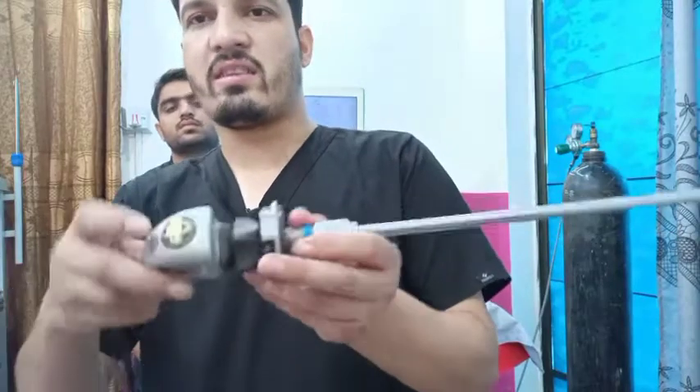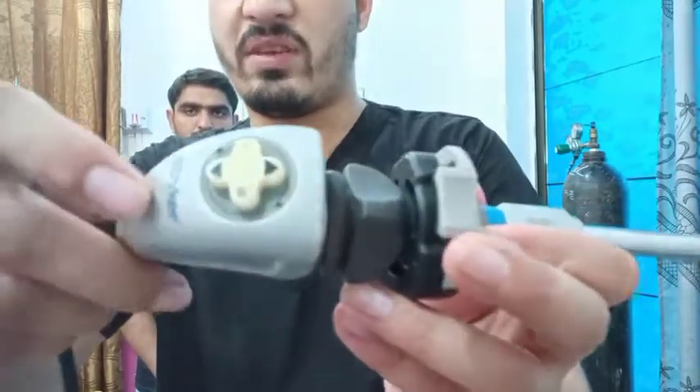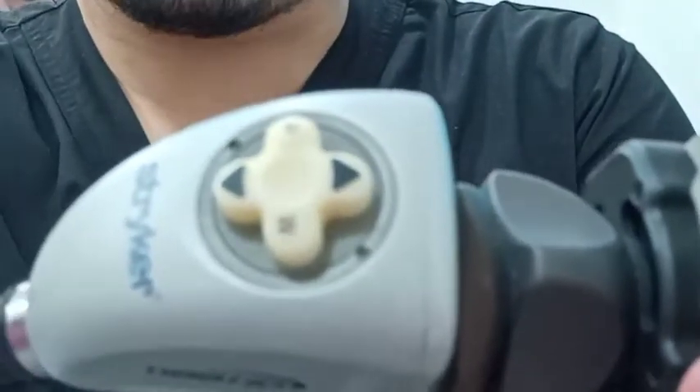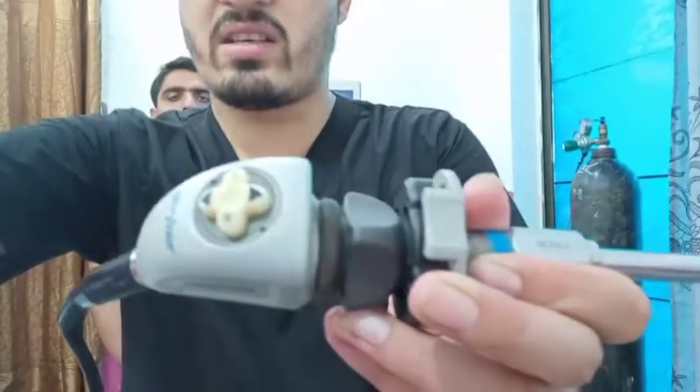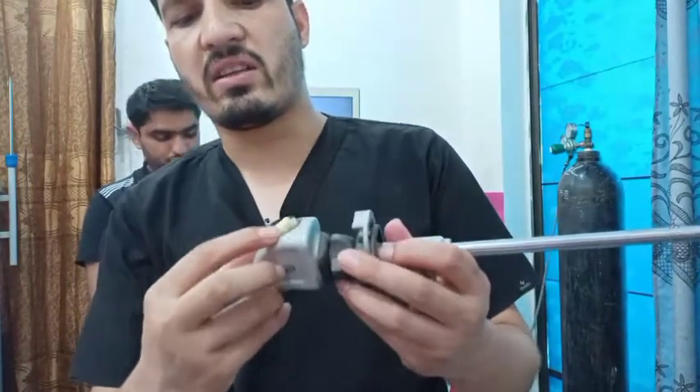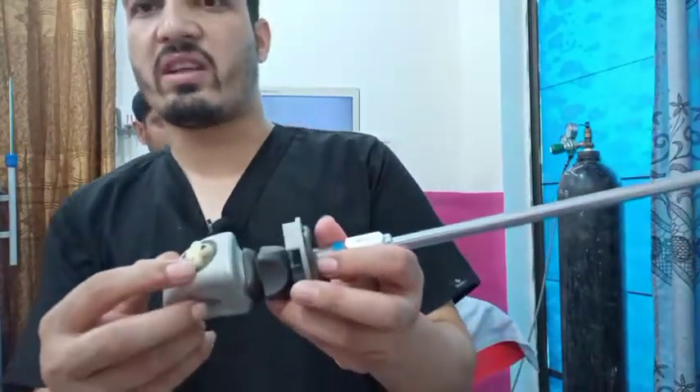At this point you will focus it. There are four buttons — on one button there is written P, another button there is written W, and one is for the white balance.